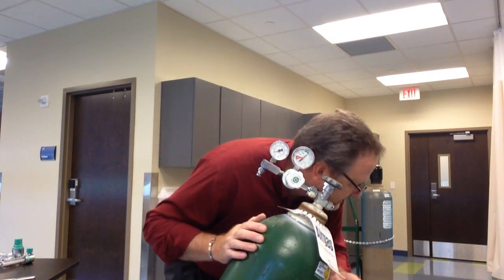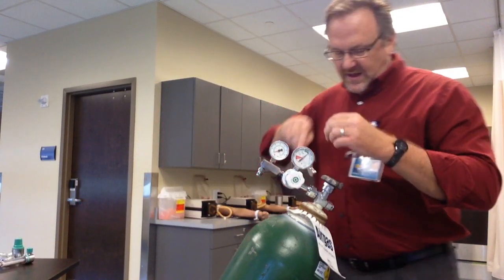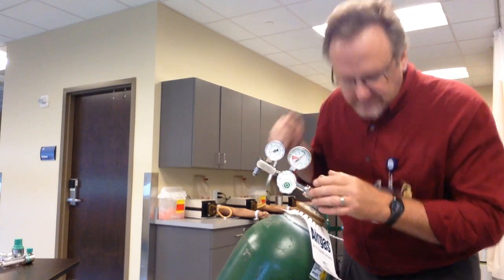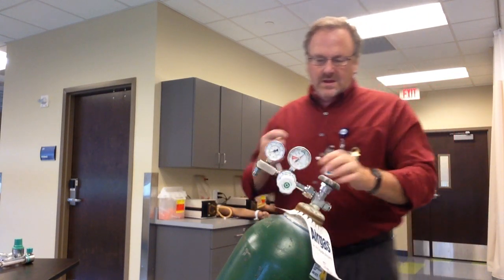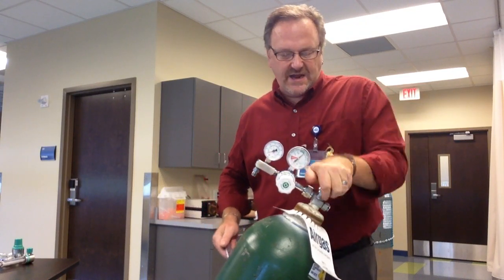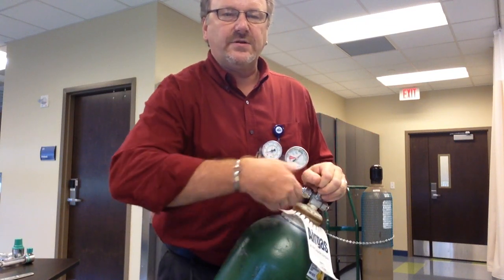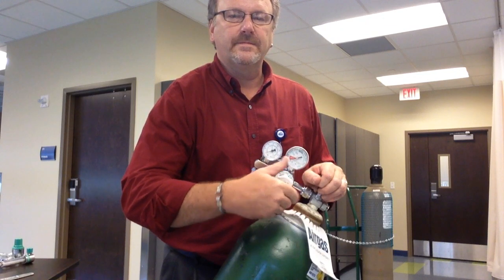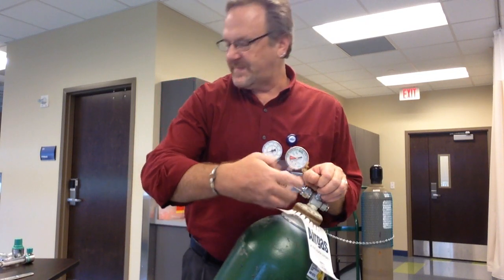And you listen. I've got a hiss — that means I have a leak. What do I do with that? I need to put this on tighter. No hiss. Now, once you're done, you want to turn the tank off and decompress the regulator. My needle went down to zero. Turn this back off.